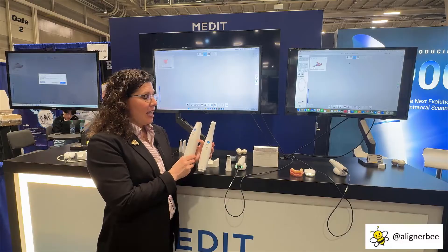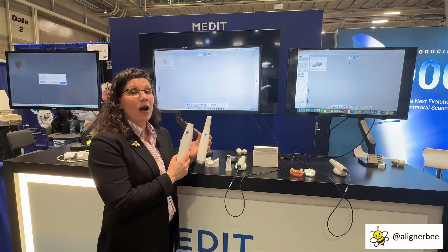Because of the battery, the wireless version was actually slightly larger and heavier than the wired version of the scanner. So these were always a challenge for me with smaller hands to use.